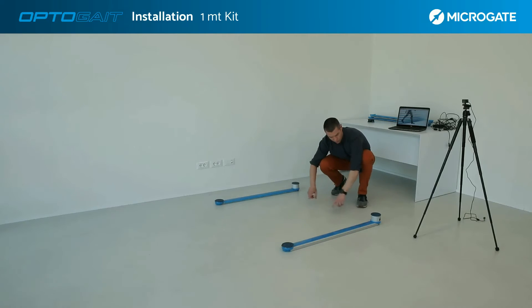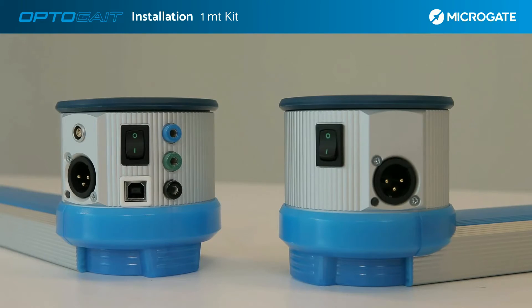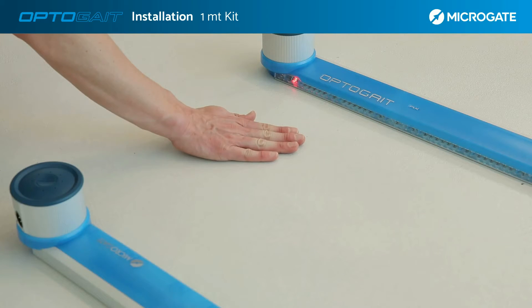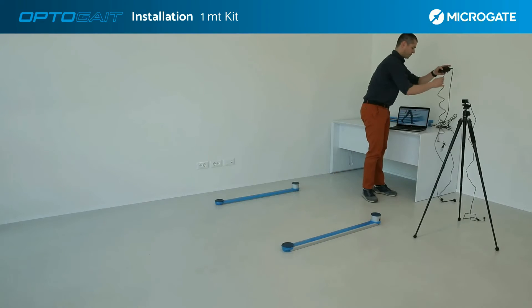The distance between the bars varies according to the test; generally the maximum distance is 6 meters. The bars can be switched on via the power button even without the power supply being connected, as the interfaces are equipped with internal batteries. Once switched on, a LED at the end of the bar allows a simple hand test to determine whether communication between the two bars and the system is working properly.